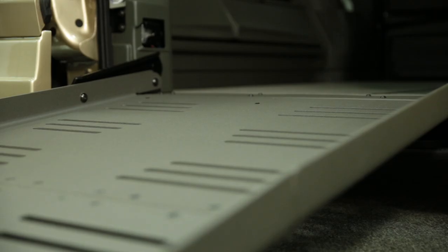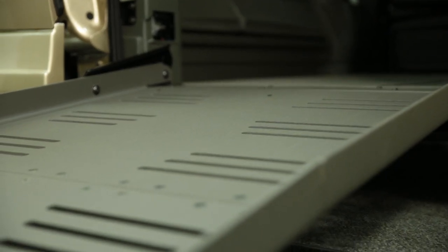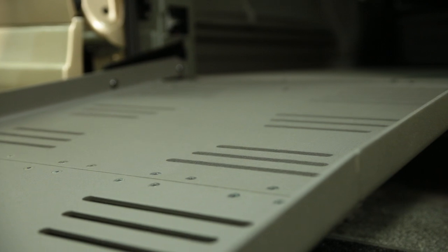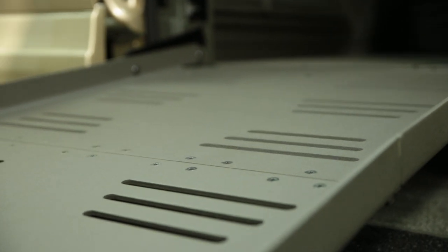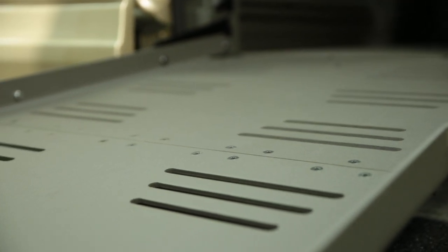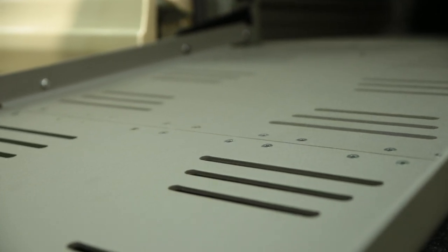Another critical distinction of the fold-out ramp, an extremely smooth transition from the ramp into the vehicle. No rough bumps, making entering and exiting the vehicle easy and comfortable.